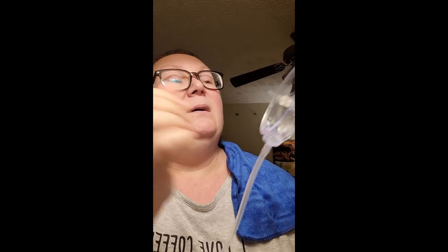I may have to adjust this a little bit. It's supposed to go in the ear canal. I think that might do it — you can see the tube goes through there. You don't want it to go too far. It says to test it a little bit and that it's supposed to be in there securely — I feel like that'll be perfect. I've got the tube in here to catch all the fluid, so I'm just going to go ahead and start pumping.